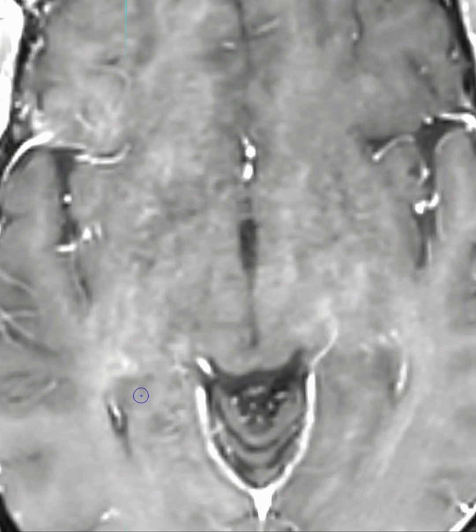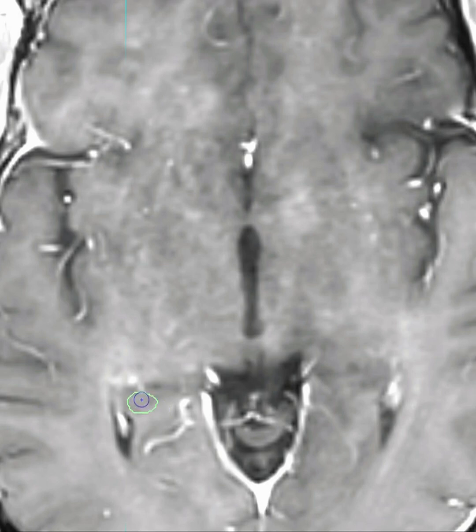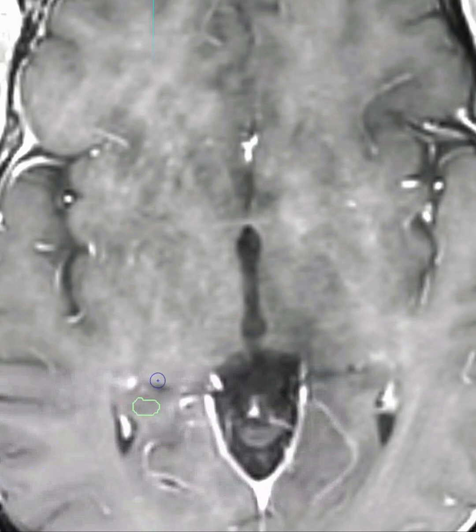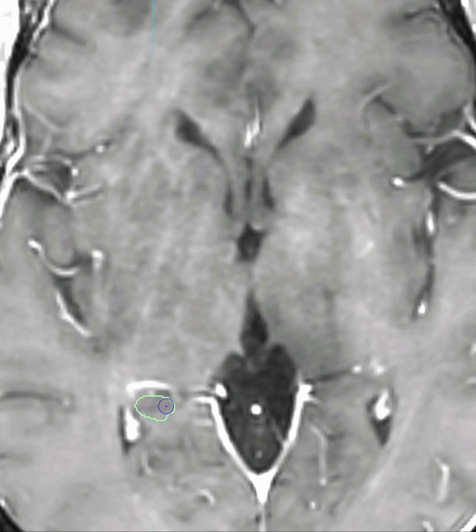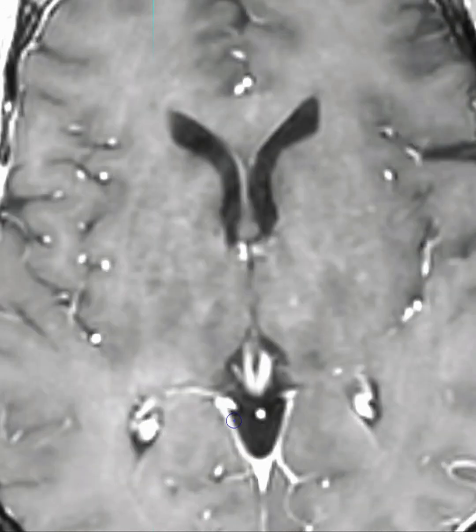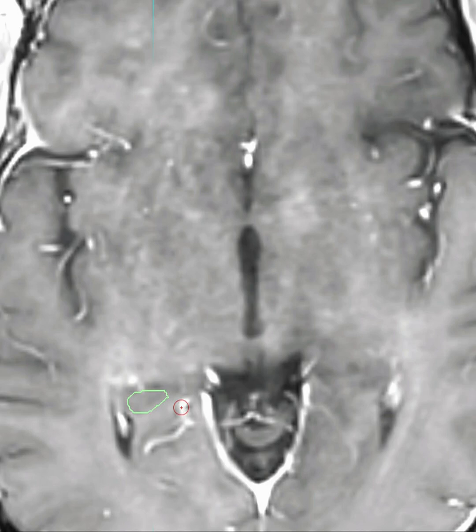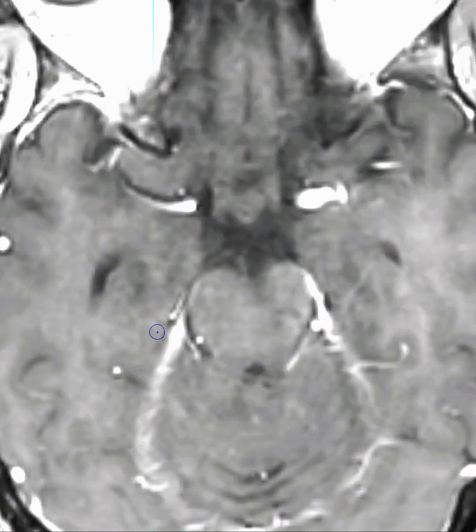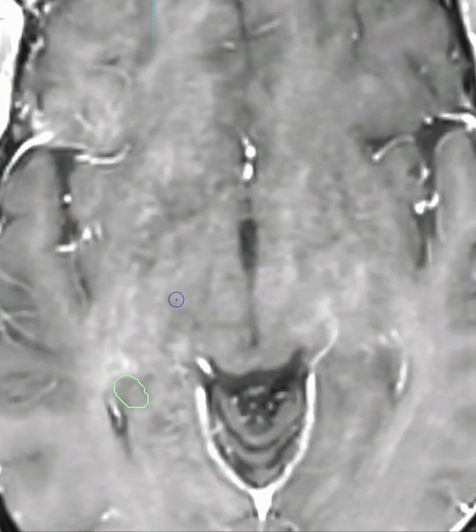It does keep going up here, and then right here it starts to get a little flatter — this is a part of the hippocampus that a lot of people miss. This may be the last slice where I can see it, as there's no grayness anymore. I'll interpolate and smooth this just a little bit.